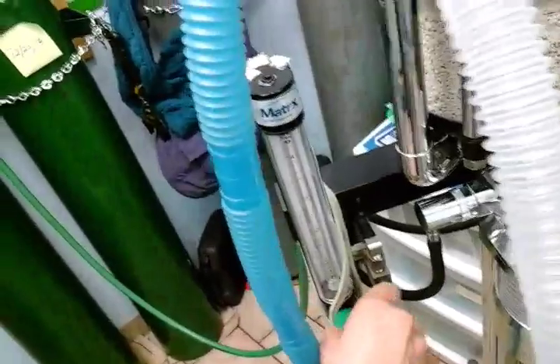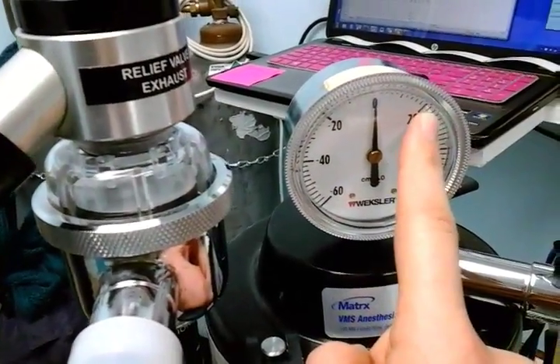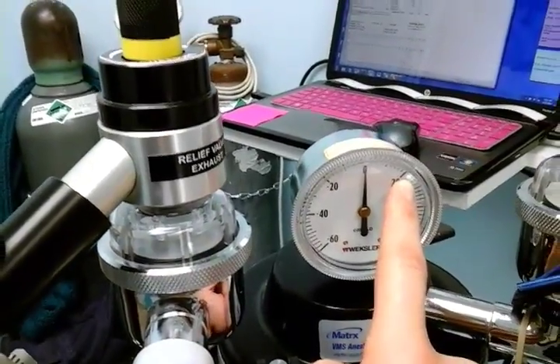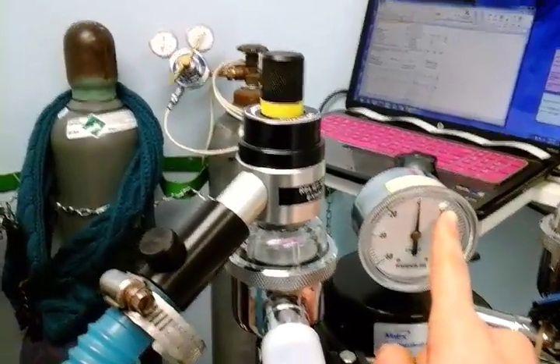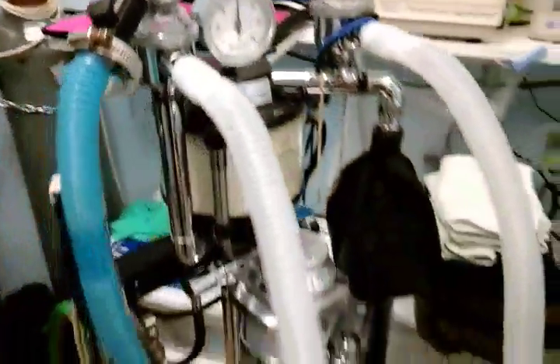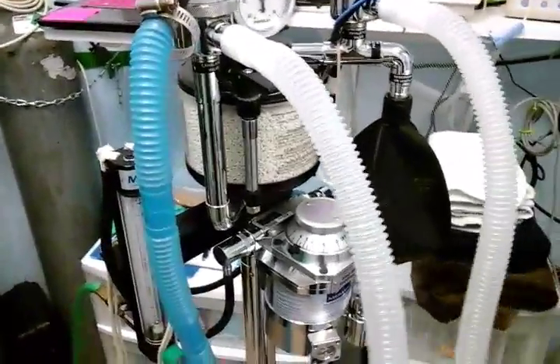Turn up your oxygen flow until your bag starts filling, until it reaches 20 centimeters of water, just above 20 centimeters of water, and it has to hold for 5 or 6 seconds at that pressure before you know your pressure system check is done. When you are done with your check, you want to open up your pop-off valve to release the air. Then you can let go of your breathing tube and your leak check is done.